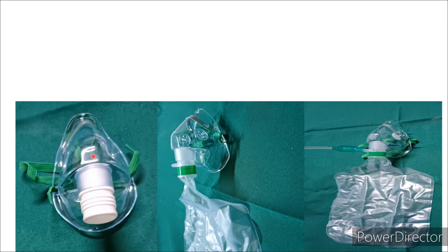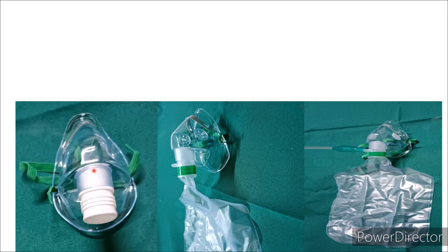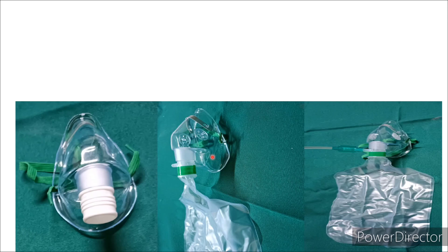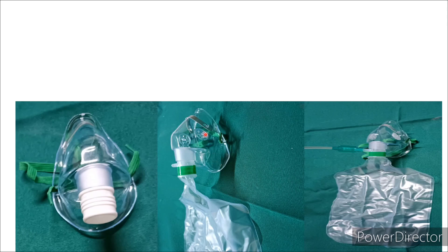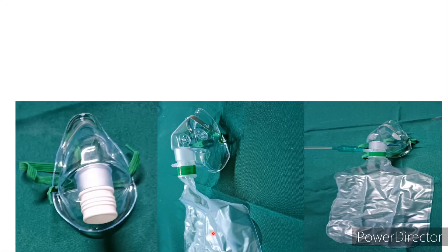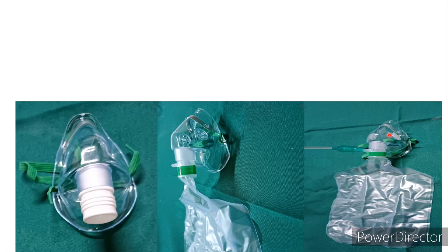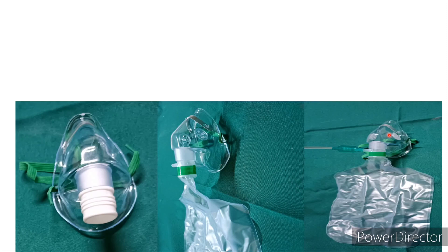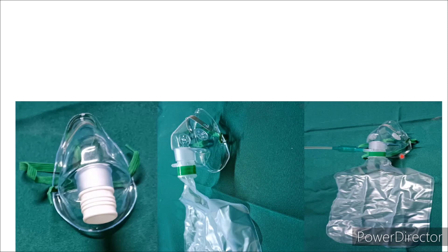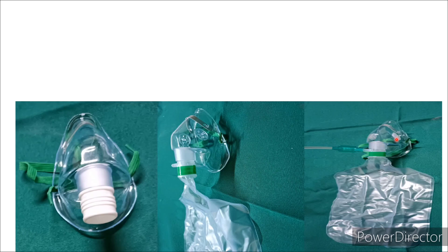To summarize visually: this is the simple face mask; this is the partial re-breathing mask, which consists of a mask with a reservoir bag; and this is the non-rebreathing mask (NRM), which consists of a mask and a reservoir bag with three one-way valves.